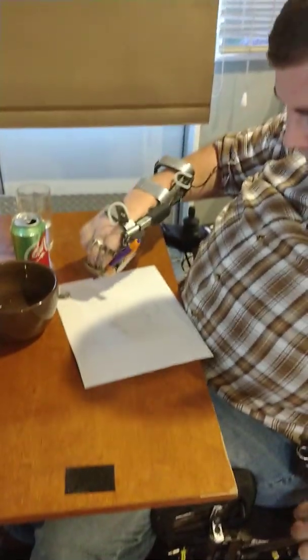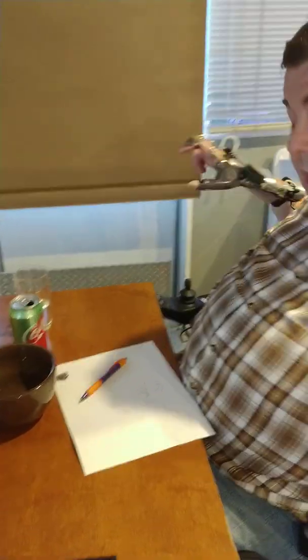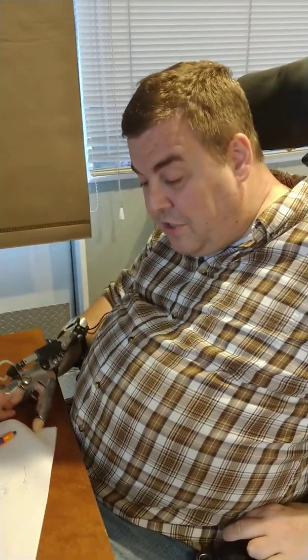Anyway, that's the review of the Neomano. Great job guys, I mean very challenging to do right out of the box. And I mean I love the product, I hope we can do more with it and I hope to hear from you soon. Bye.